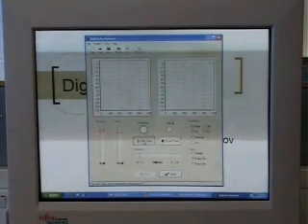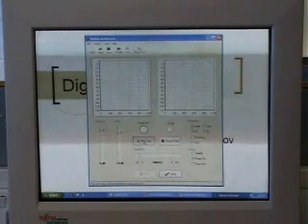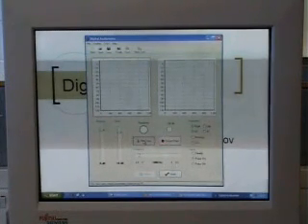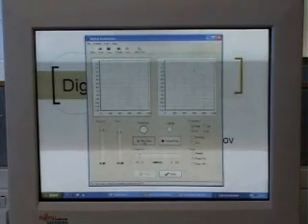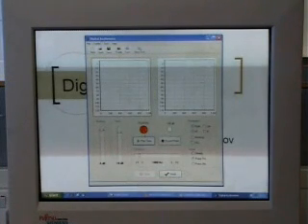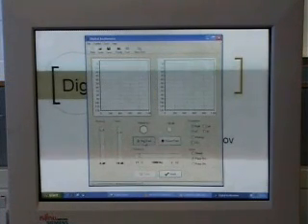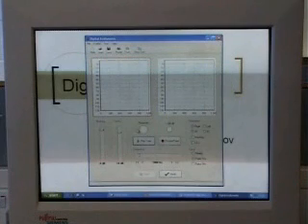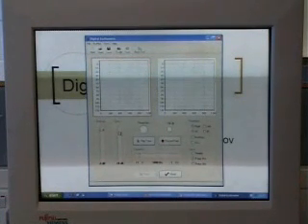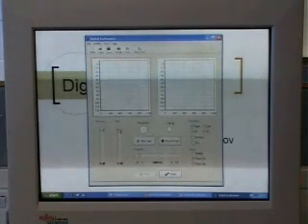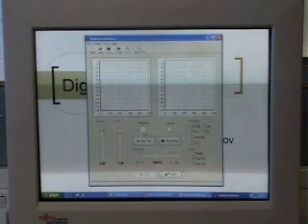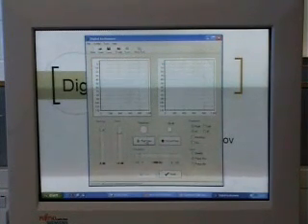And we play that tone and the person would be wearing a headphone and he would hear a signal. And when he hears a signal he presses the response button and it will appear as a red point on the user interface. And then we know that the person has actually heard the tone. And by adjusting the level, the output level, we find the threshold of hearing for that particular frequency.